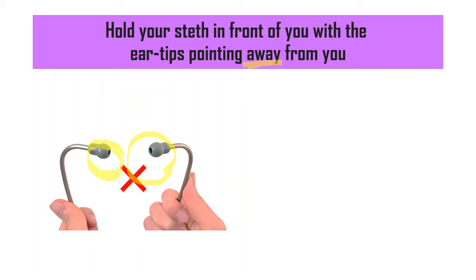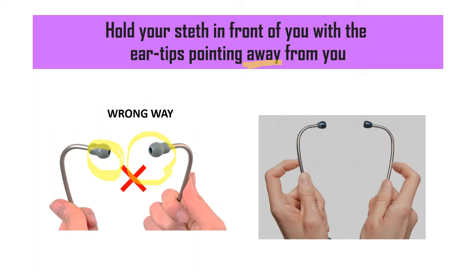This is the wrong way of holding it. Instead what you should do is hold it in such a way that the eartips face away from you. I hope you can clearly see the distinction. When the eartips are pointing towards you, you can see those hole-like structures facing you.